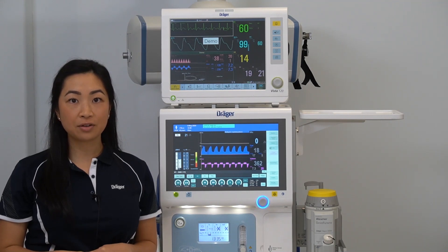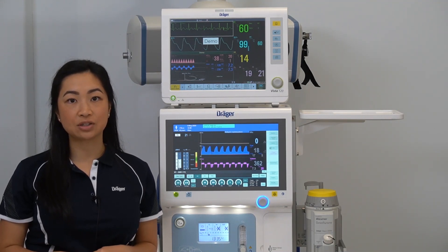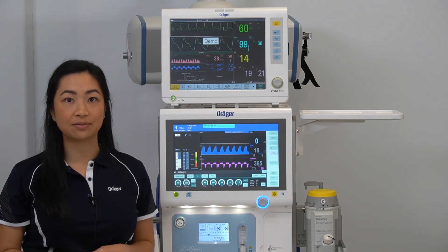For further information, please refer to the instructions for use or contact your local Dräger representative.